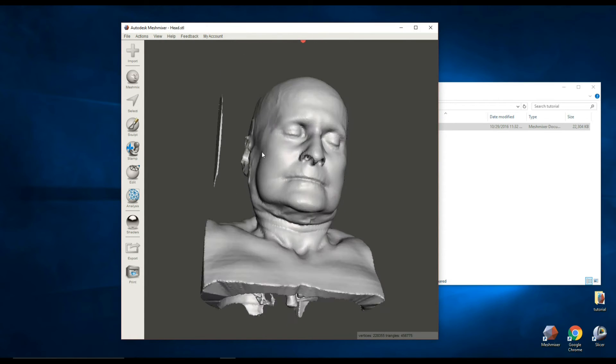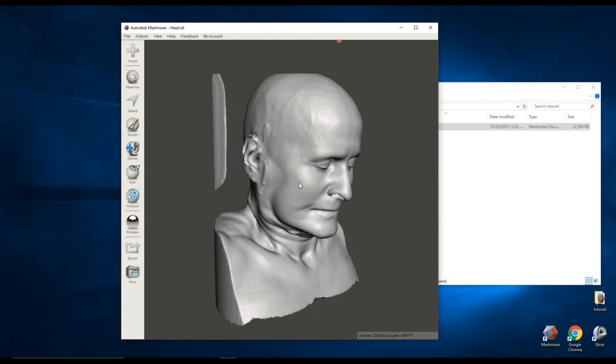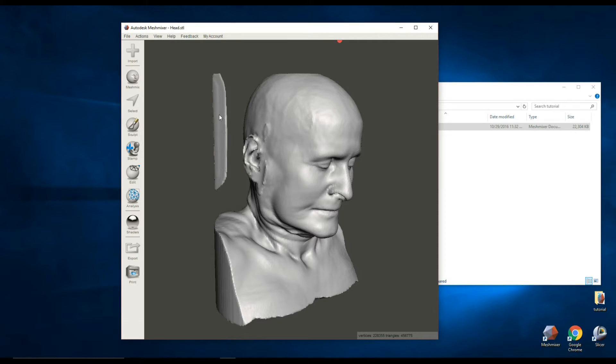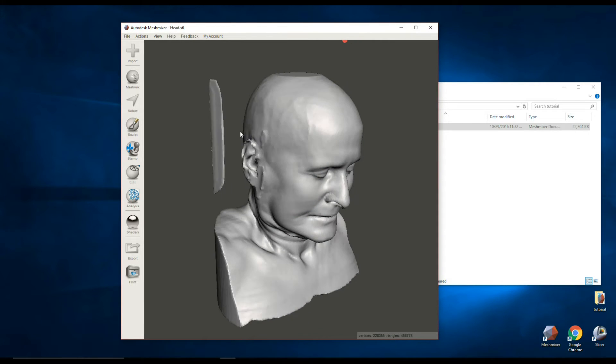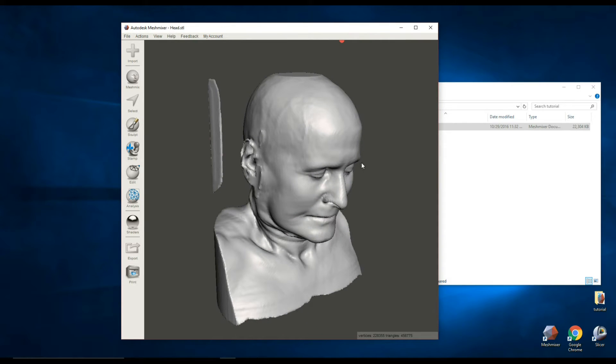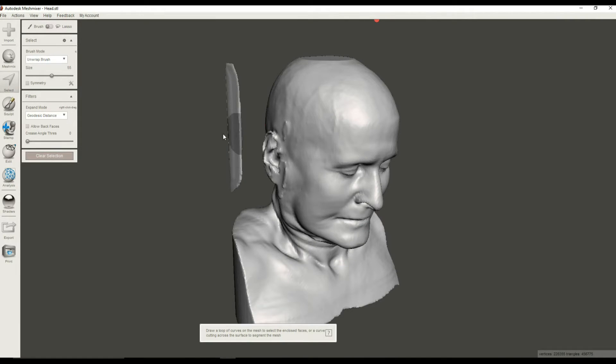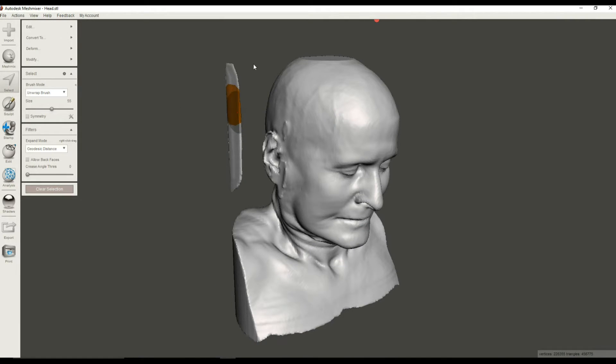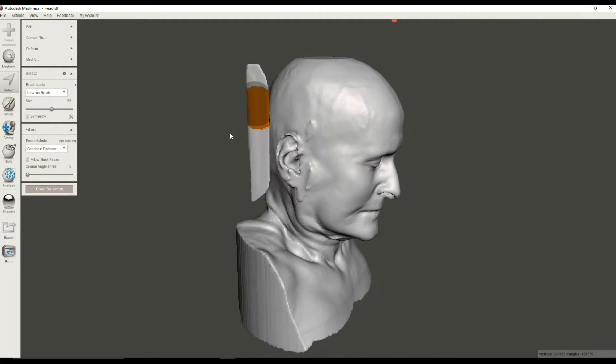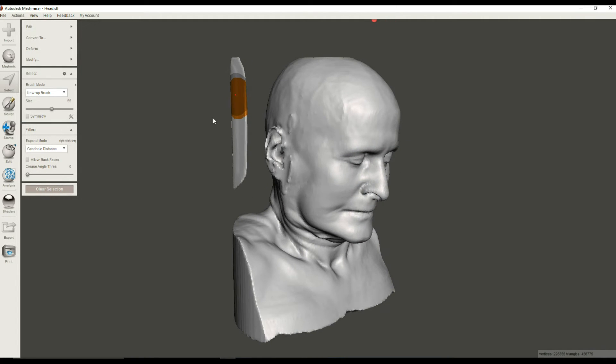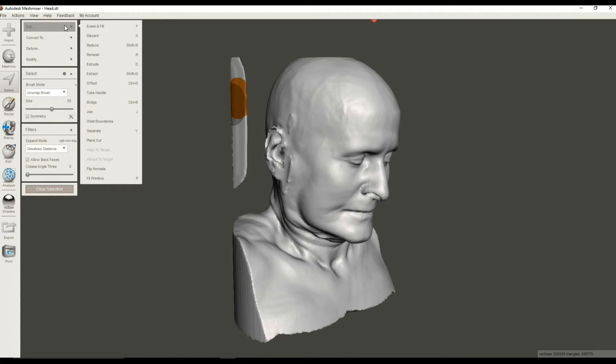Now first of all, what we're going to do is we're going to get rid of some of this stuff. You can see that there's this object element right over here that we don't want. I'm going to use the select button. I'm going to select this, and what you can do is you can expand your selection so that everything that is touching this orange region will be selected, and you can do that by hitting the E key.